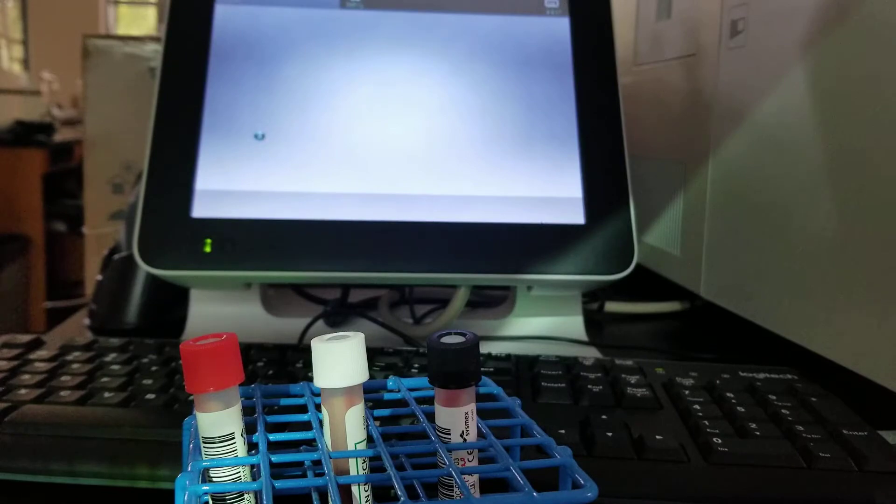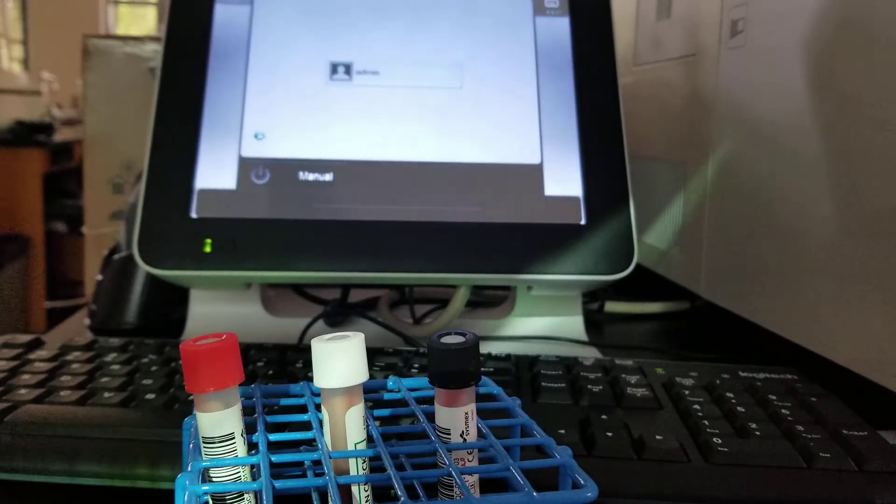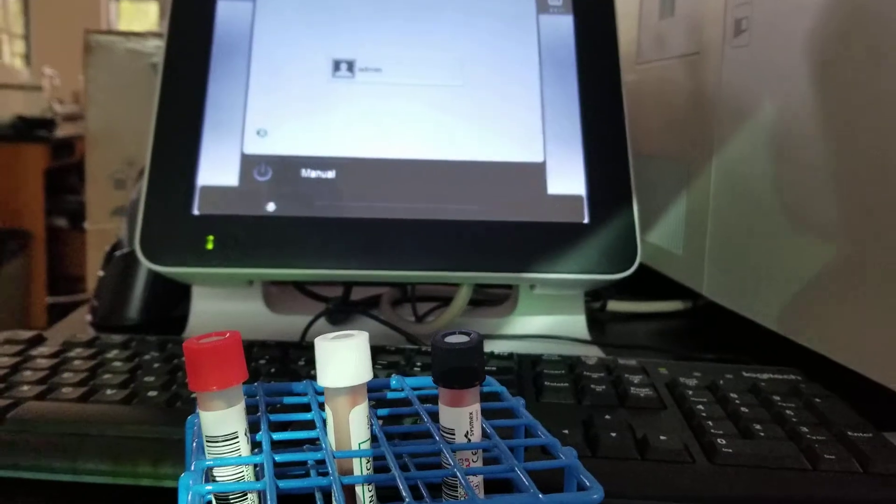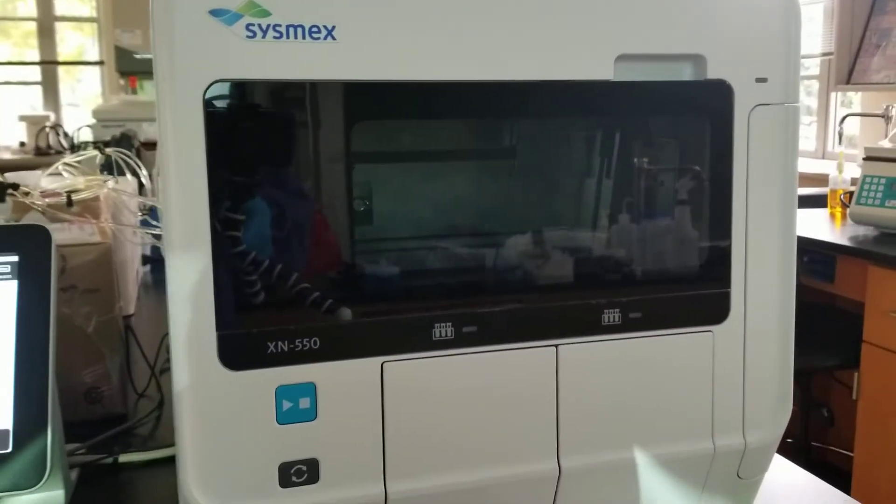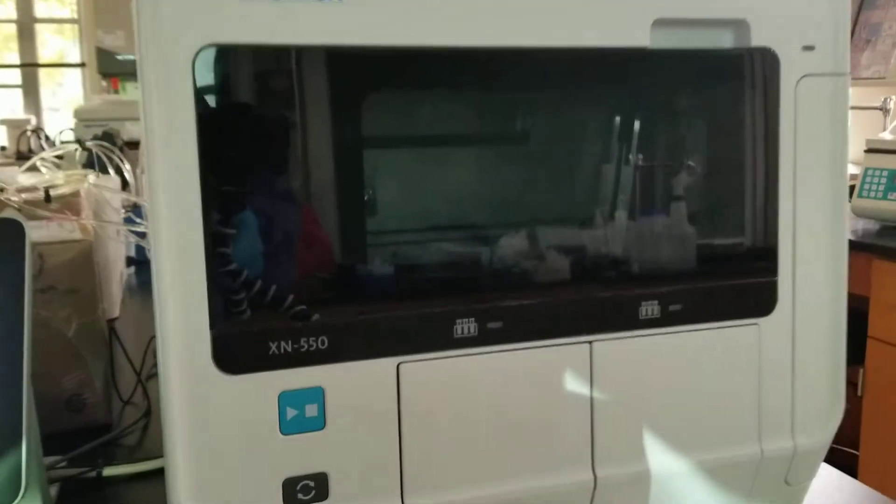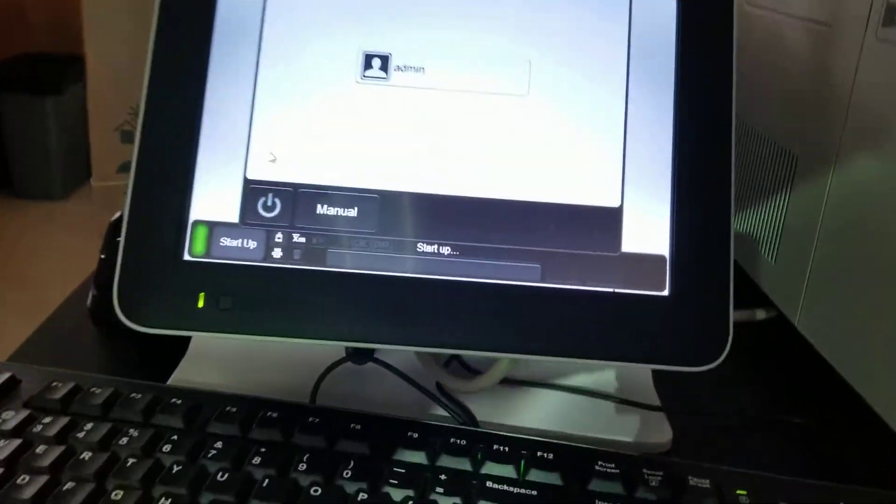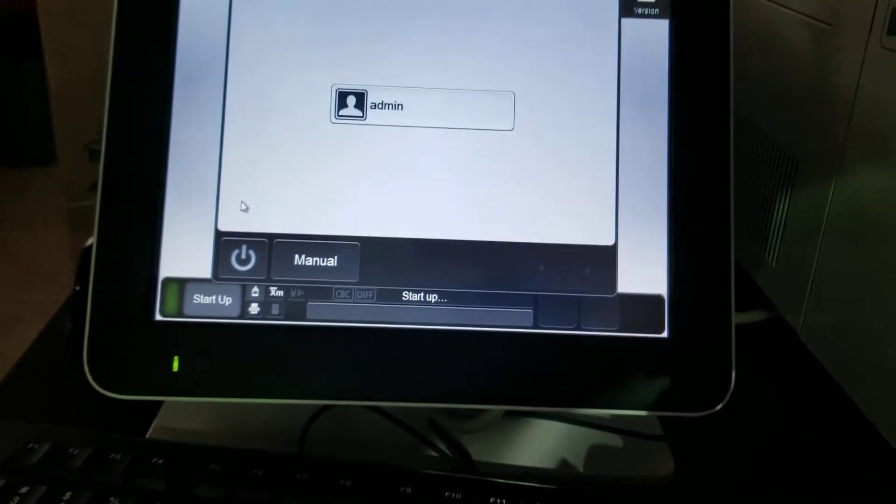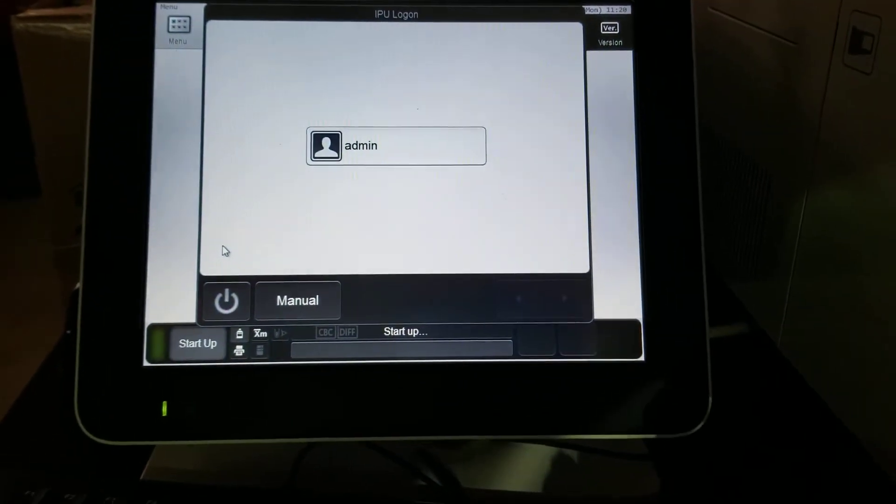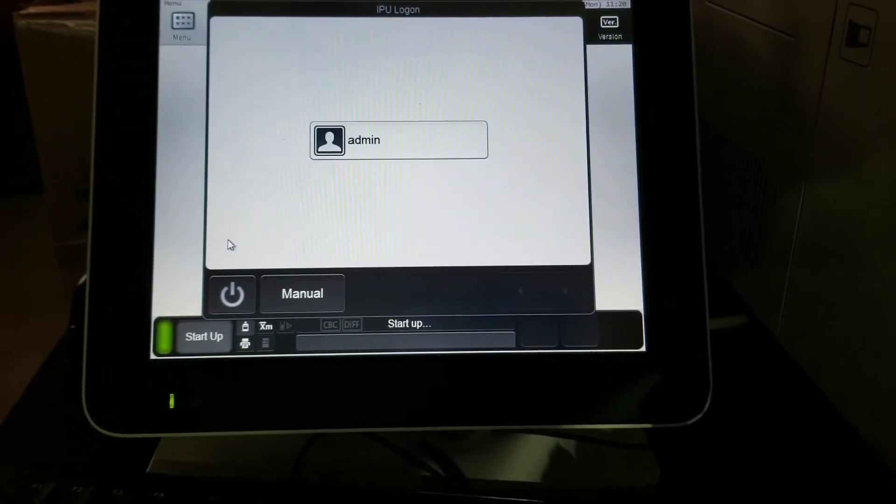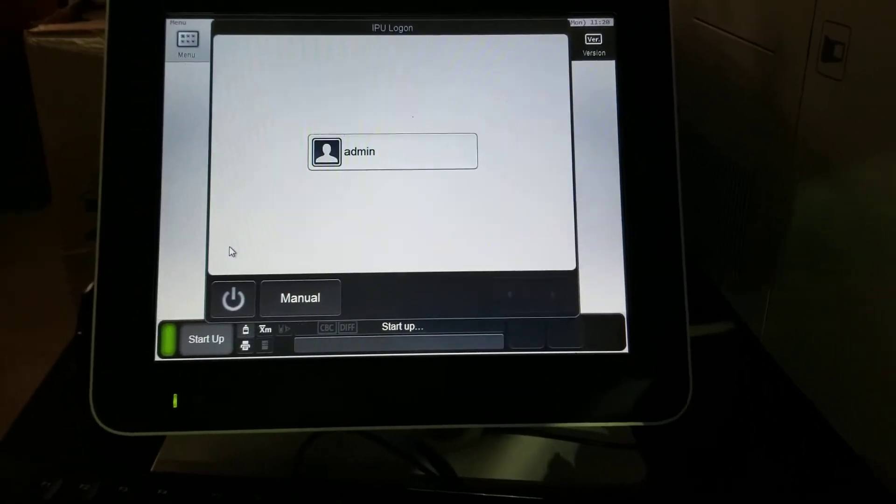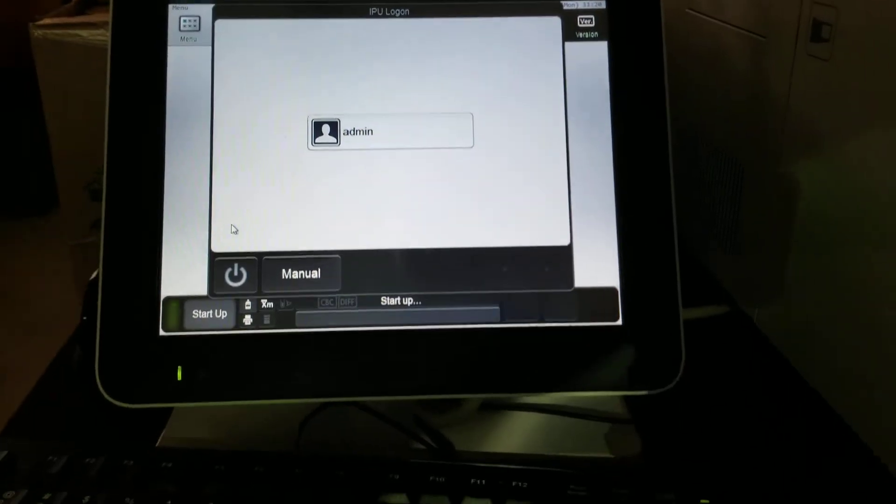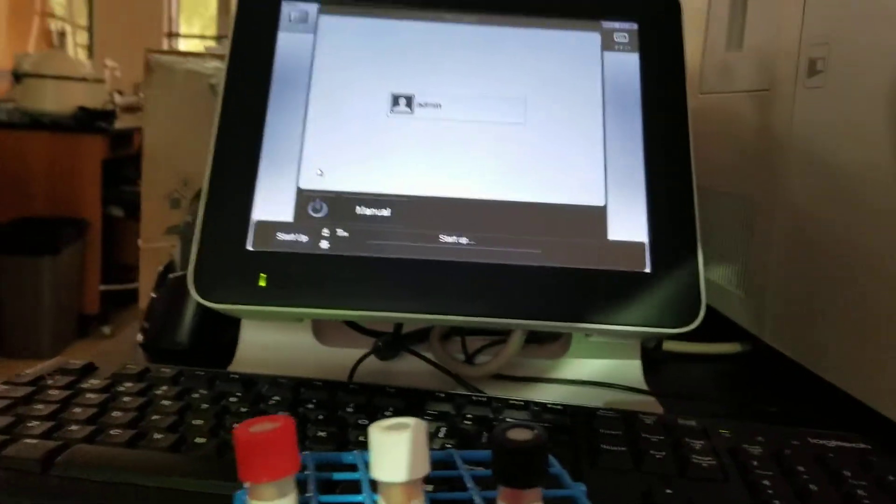We see some change happening on the screen here. We also see that the drawers were lit up and now they're working. You didn't see the drawers light up, but they were red. So it still means not ready. The green on the startup bottom corner means that it's getting going. So what we do first is we sign in.